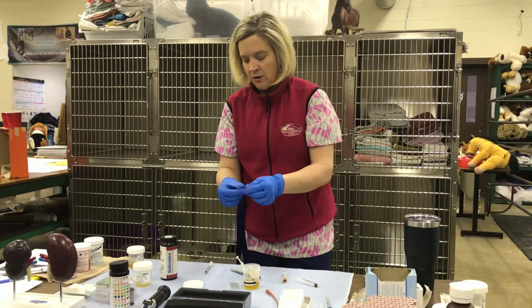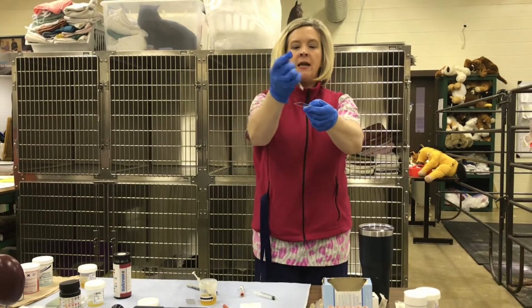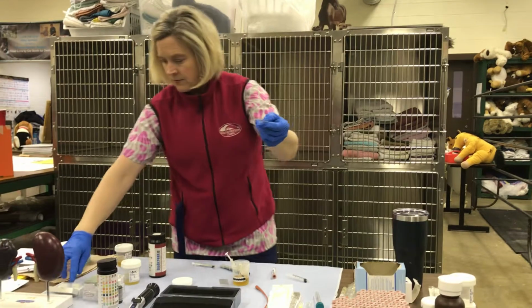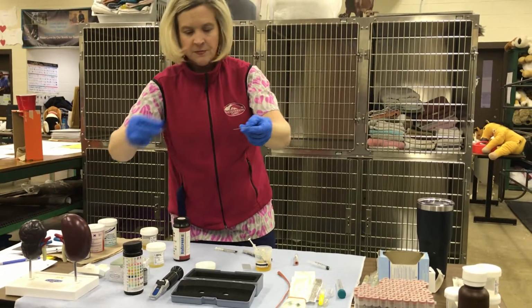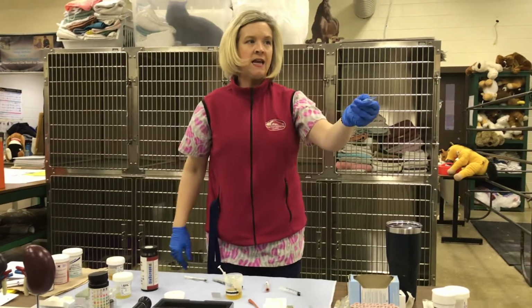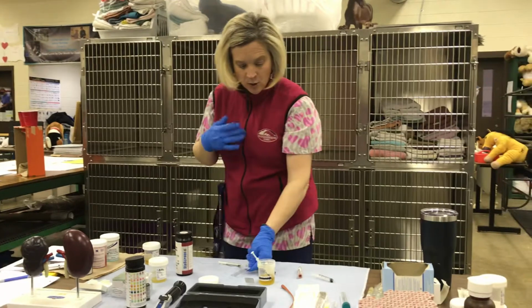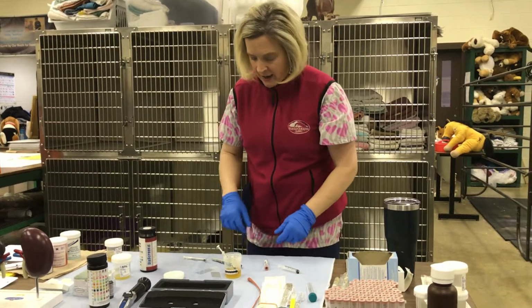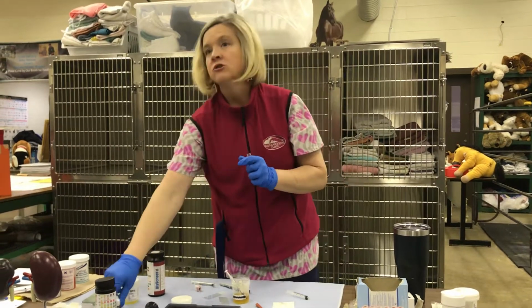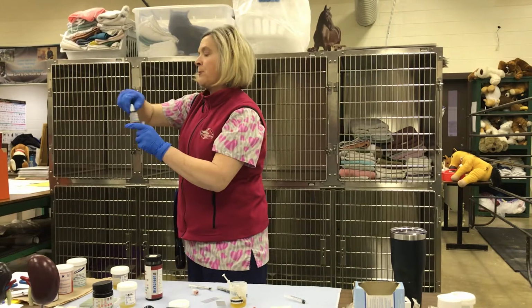Then you take your next bit from your sediment and place one drop of urine with the cover slip. A lot of technicians now are trained to look at unstained samples of sediment. I am old school, so I personally like to look at it with Sedi-Stain, because that's the way I was trained in school. This is called Sedi-Stain. It's purple.